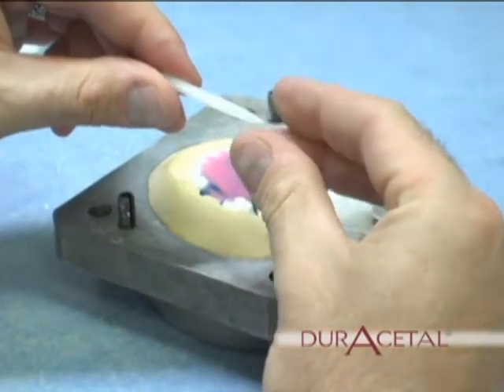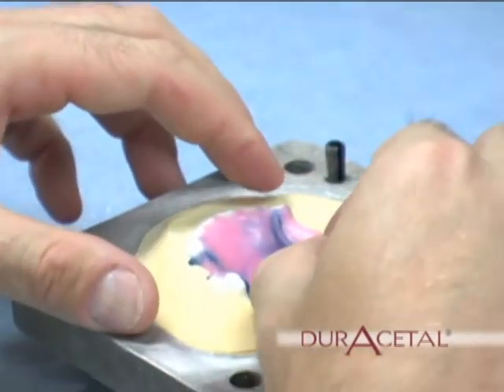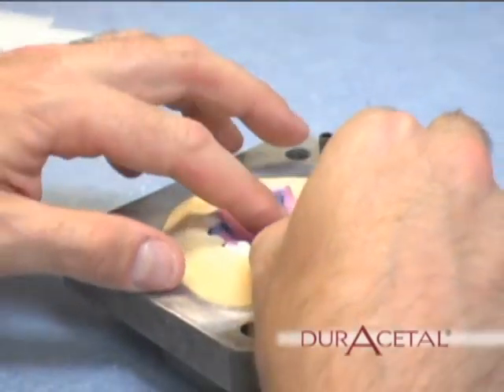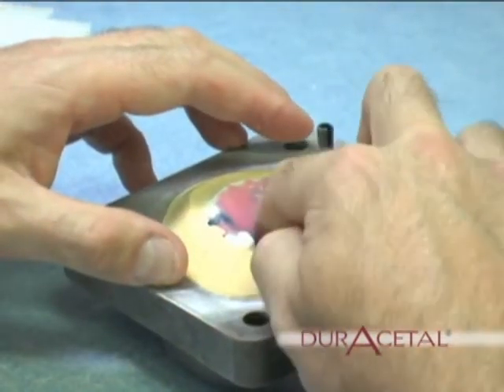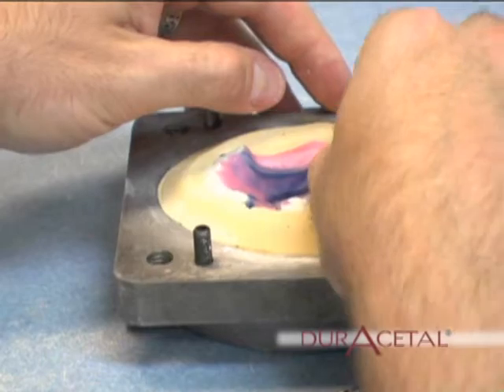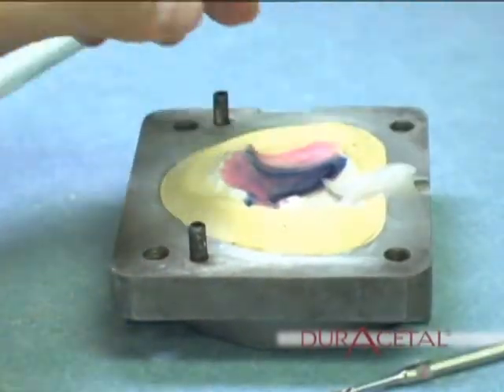Using 3-16th utility wax, place the sprues making sure you taper the end that is to be placed on the appliance. For most cases, three sprues will be enough. For smaller cases, one or two sprues.